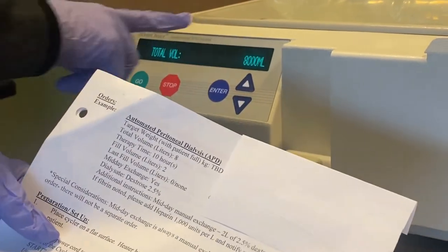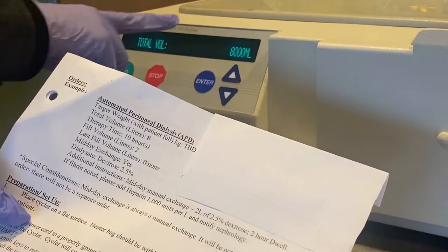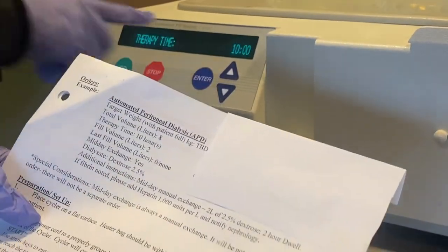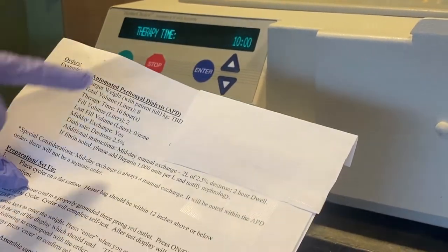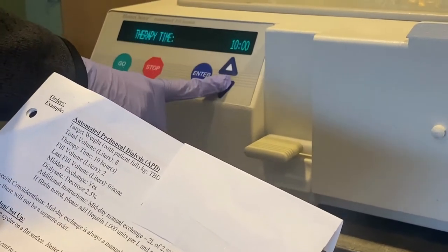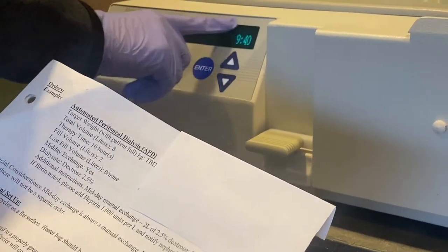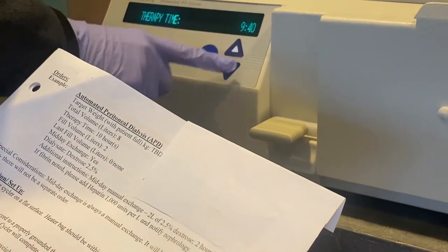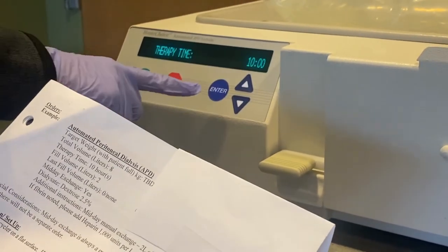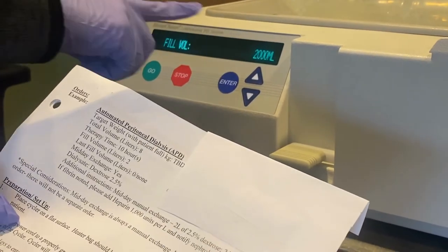Now set to eight liters. Once we have the accurate amount, hit enter again to verify it's the proper amount. Go down to therapy time — in this case the therapy time is ten hours, which is accurate. If we had to change it, we click enter and toggle; it goes in increments of ten. Go back to ten and click enter. Click the down arrow each time to get to a different setting.